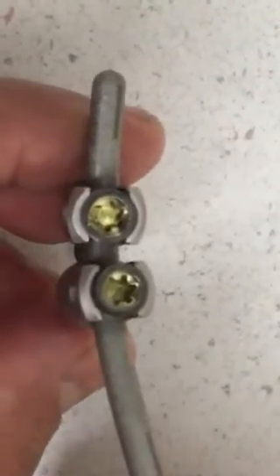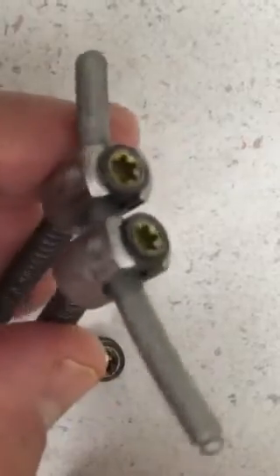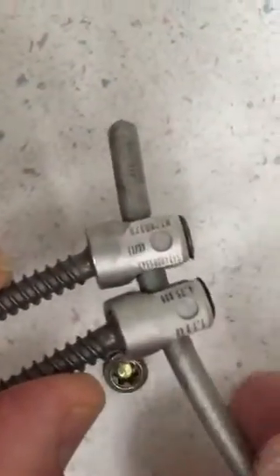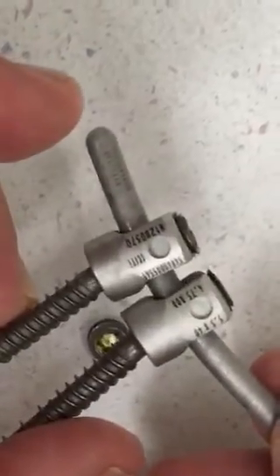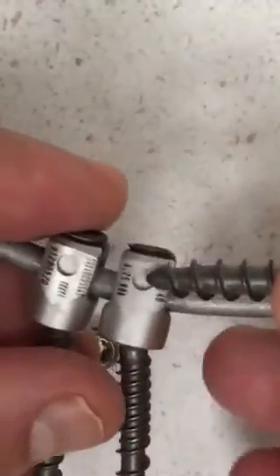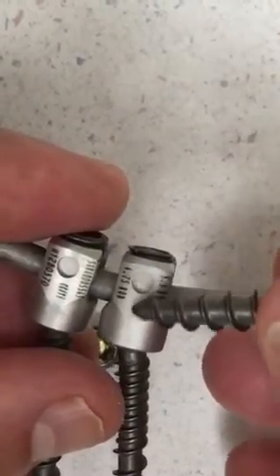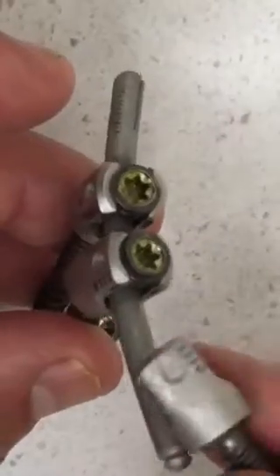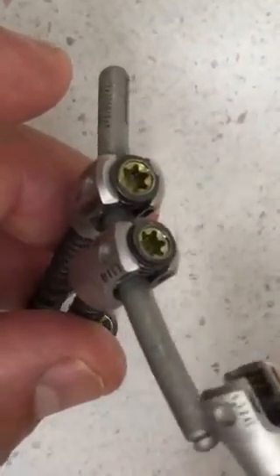This is how to remove a Medtronic Solera lumbar pedicle screw. This is what the Solera pedicle screws look like. This system is specifically the 4.75 rod — you can see it says 4.75 rod, which is different from the other rod, the 5.5 millimeter rod.